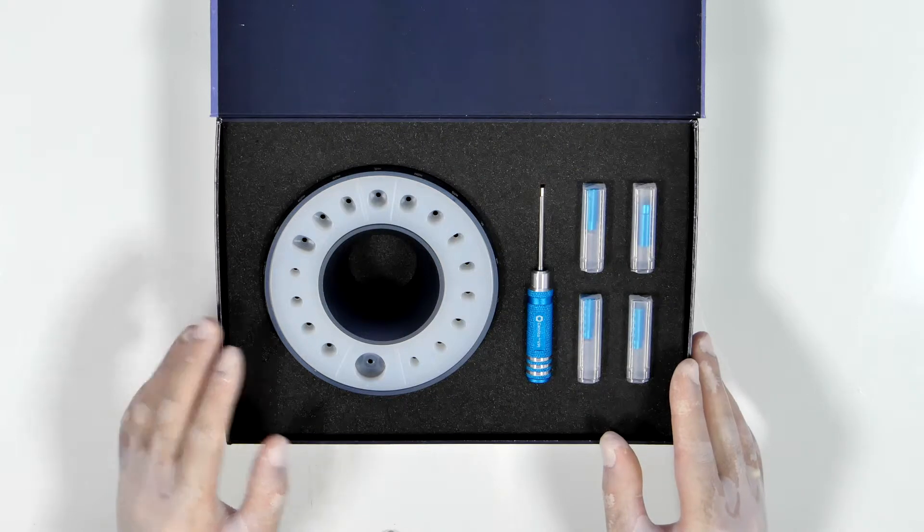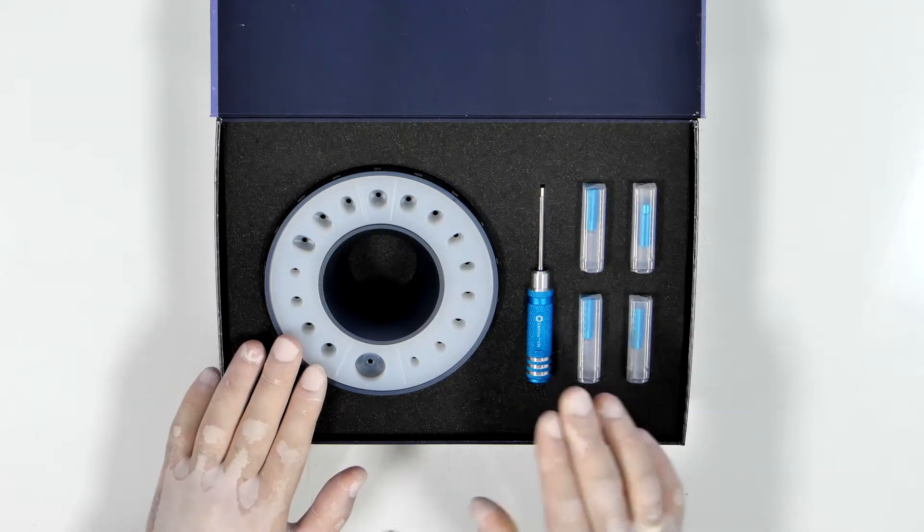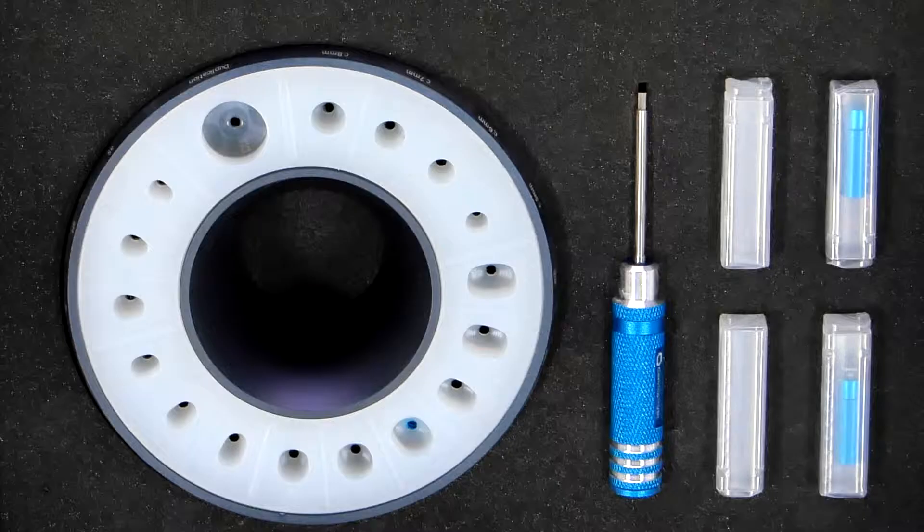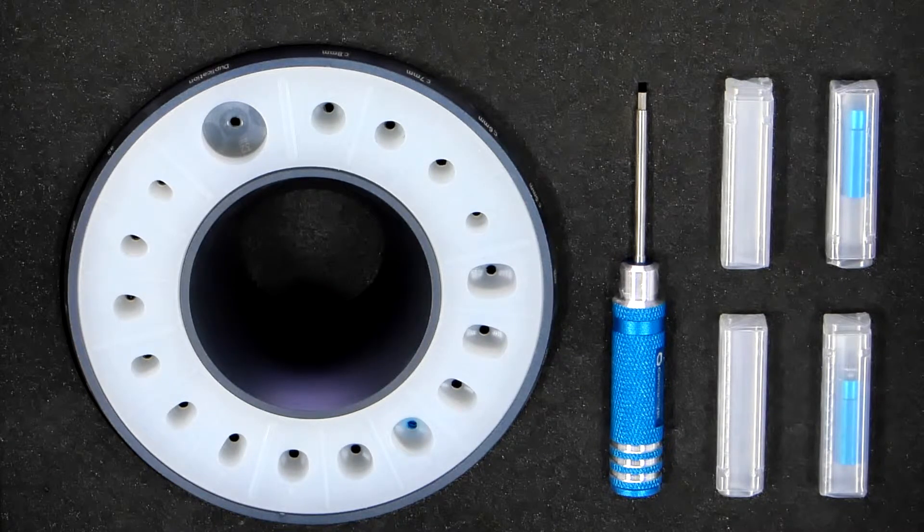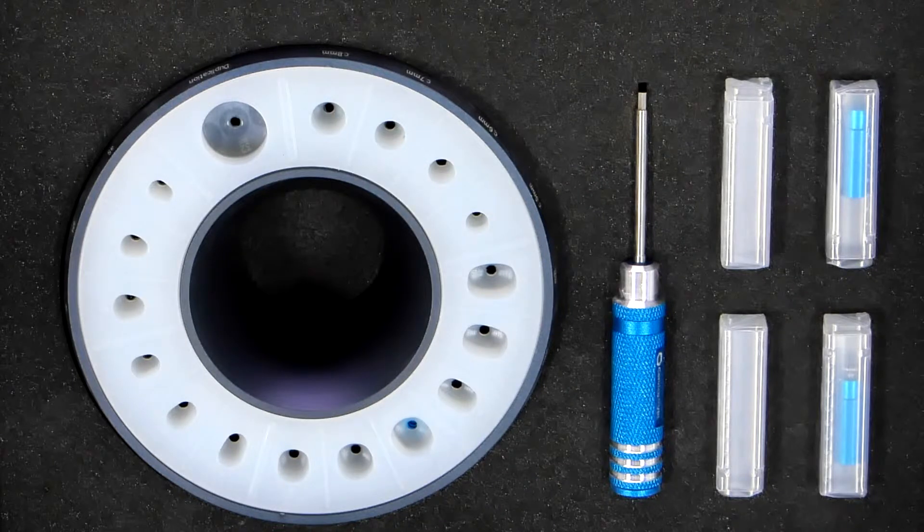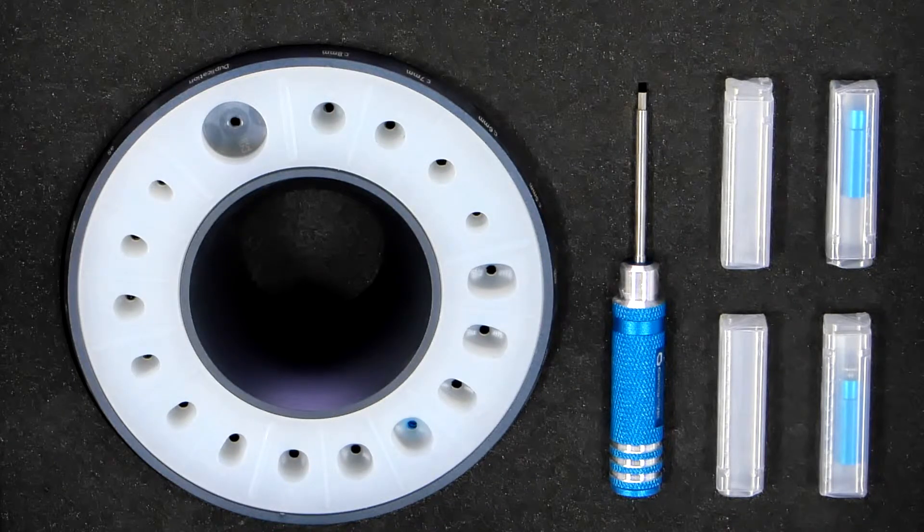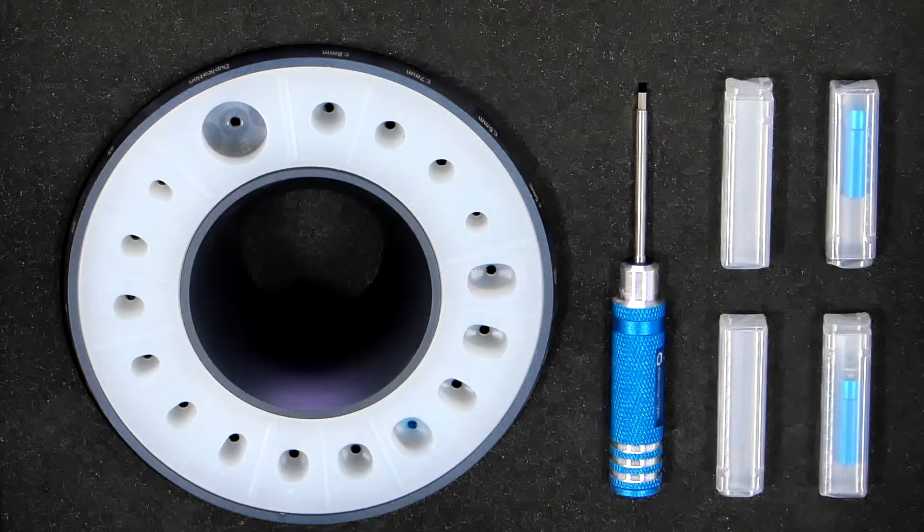In the box you will find the cervical mold and the cervical driver. The silicone insert of the cervical mold comprises anatomically shaped wells, cylindrically shaped wells, and a duplication well.